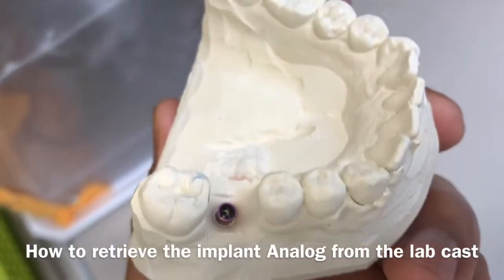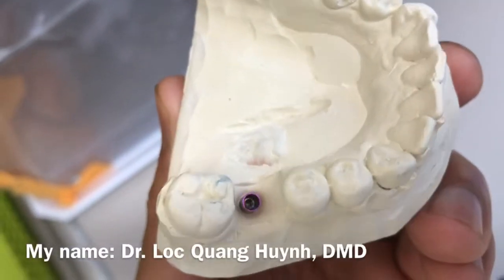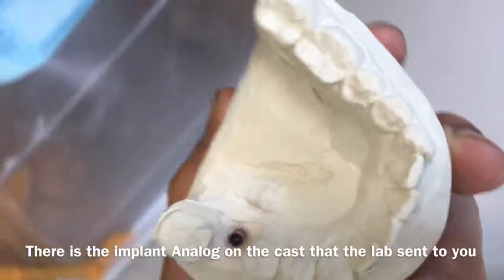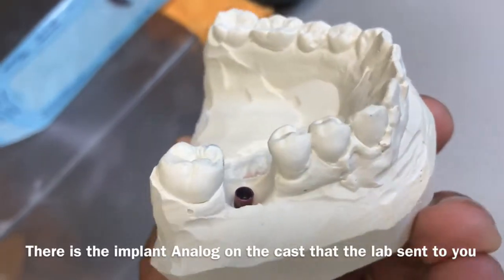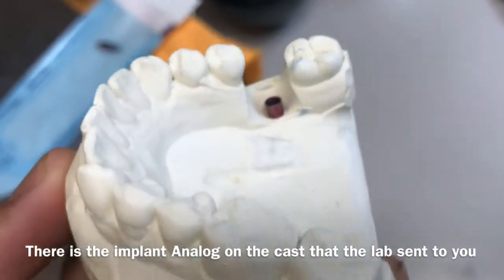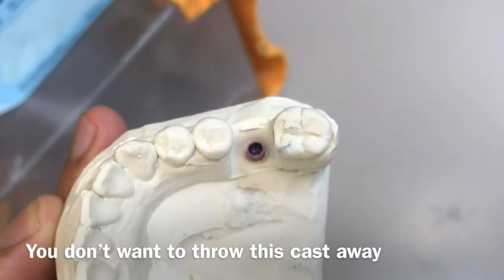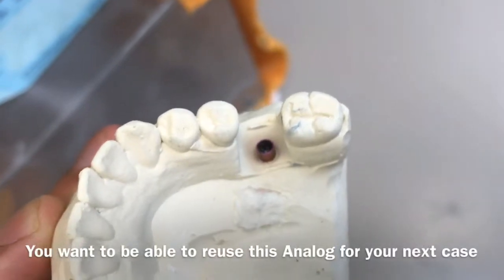Welcome back to the channel. Today I'll be talking about how to retrieve the implant analog from the cast so you don't throw it away. After you restore a case, you can always reuse the implant analog sent to the lab so the lab can fabricate your patient crown.